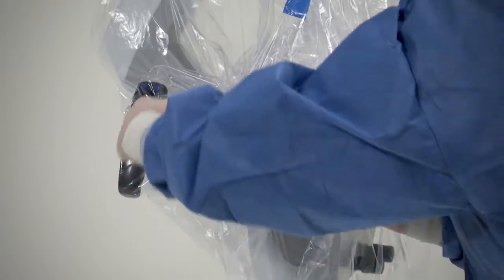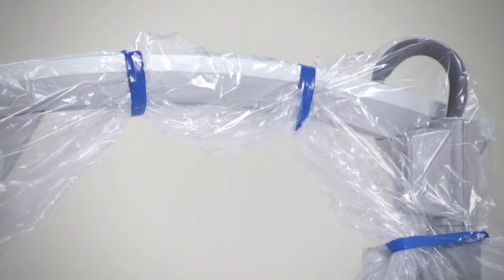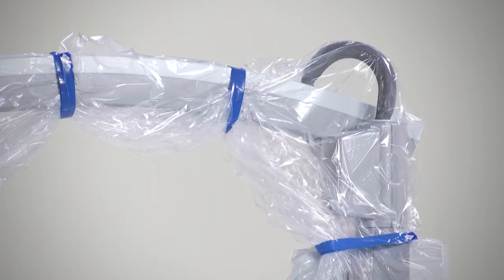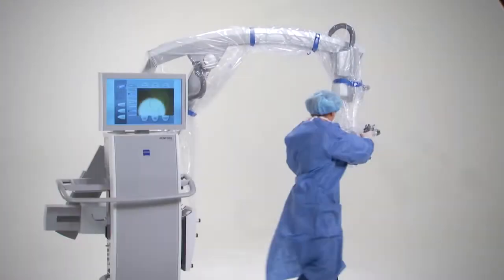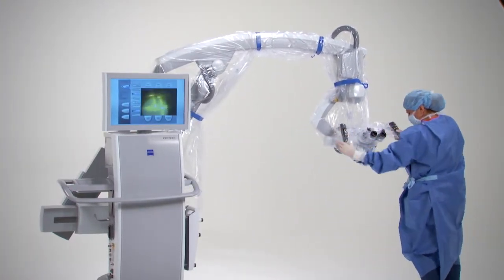If the microscope is equipped with auto drape, press the drape button in the main menu. This activates the pump. The pump system increases to maximum power for two minutes to extract the air from under the drape, and then switches to a lower speed to maintain air levels. Once the drape has been secured, check to ensure ease of movement of all controls.